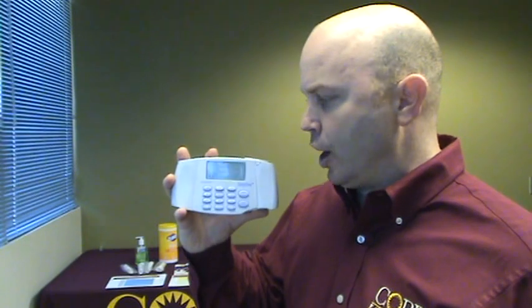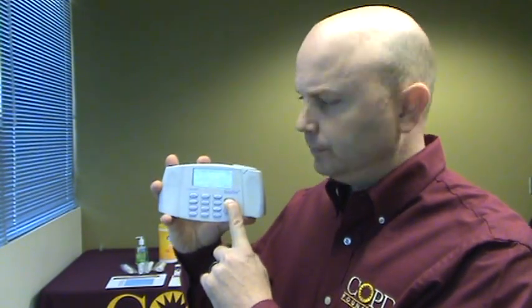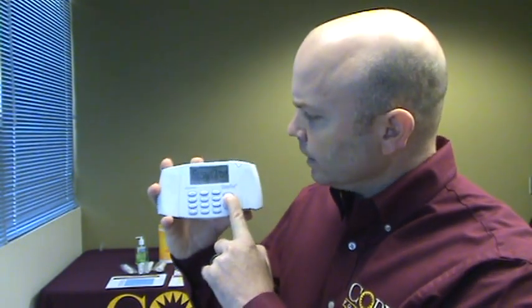We give you all the opportunity to play with this machine and touch the buttons. So the first thing we're going to do is power the unit on. You're going to press and hold the on-off button, and then the machine will power on.